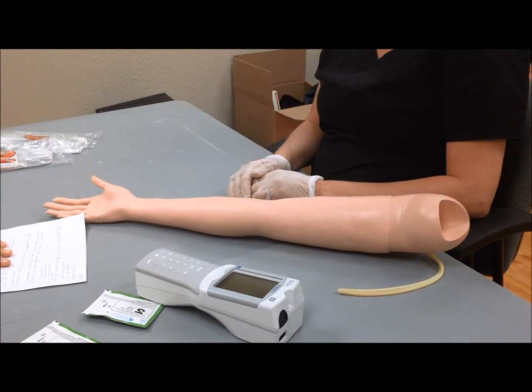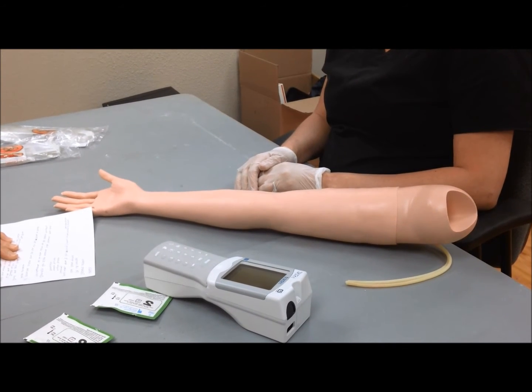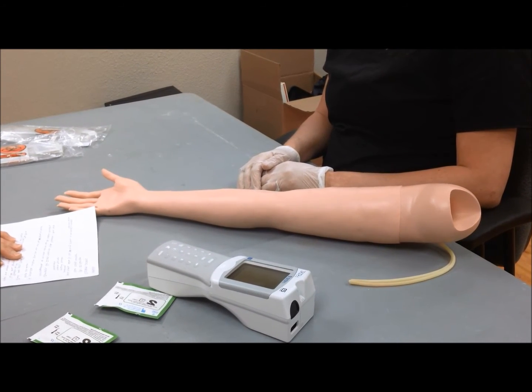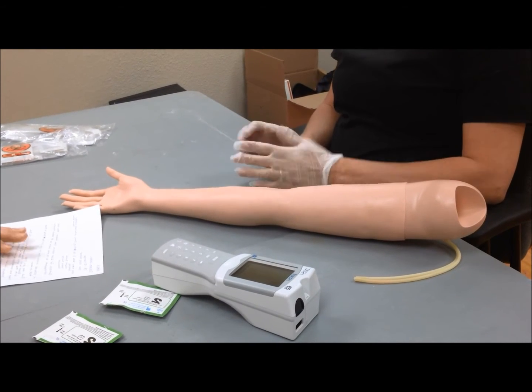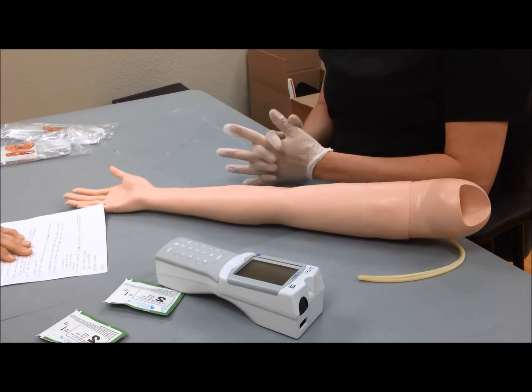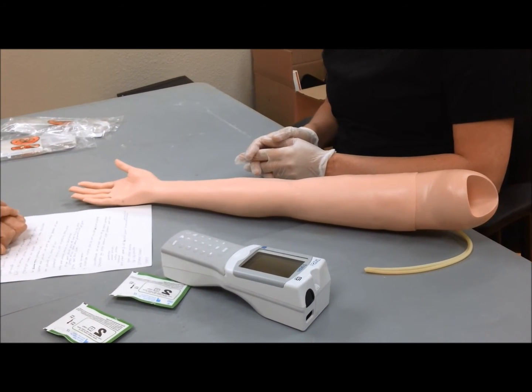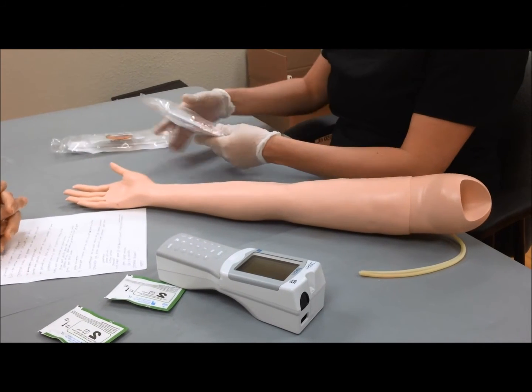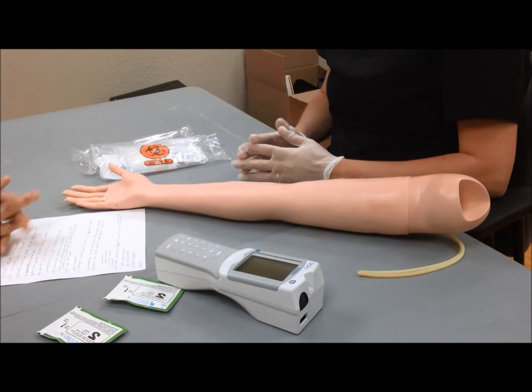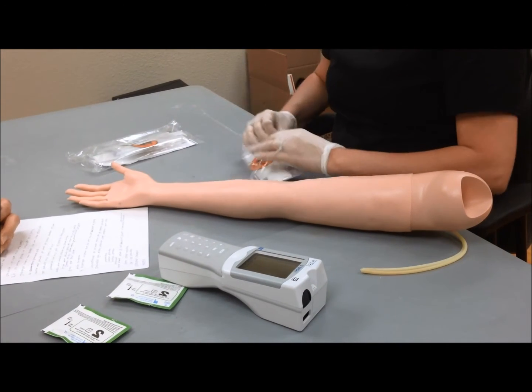We are going to demonstrate the procedure for an ABG draw. First of all, you need the doctor's orders, the patient ID number, which is found in the patient's chart, your code number, which is located on the cupboard door in the iStat room. You need several ABG kits. I would suggest taking 3, as 3 tries is the most you can do at one time. Let's open an ABG kit and see what it contains.